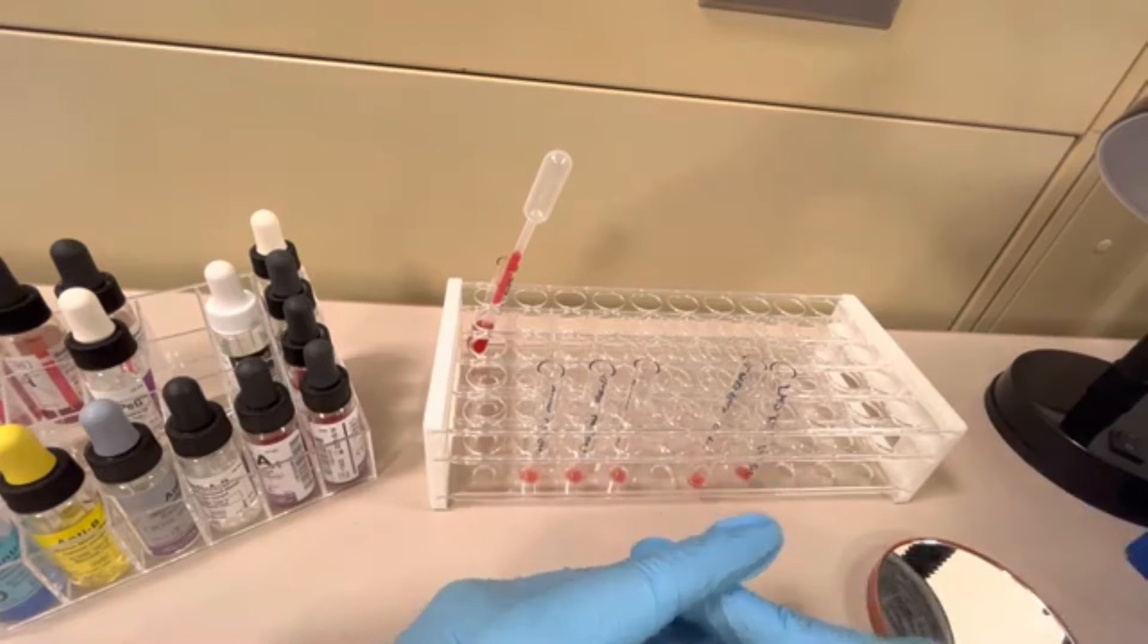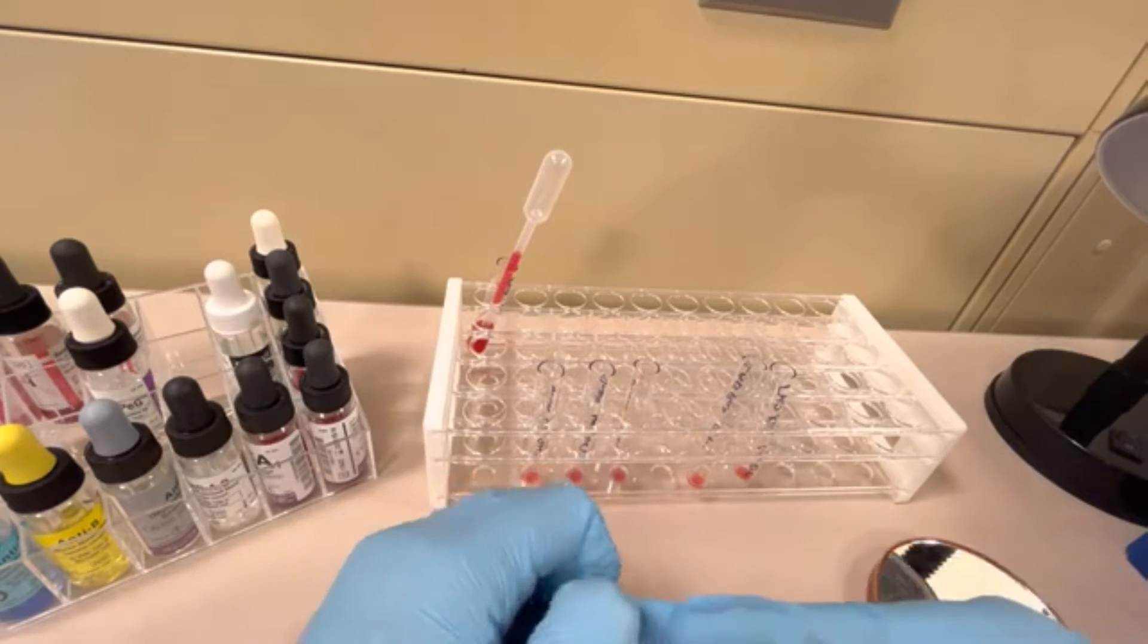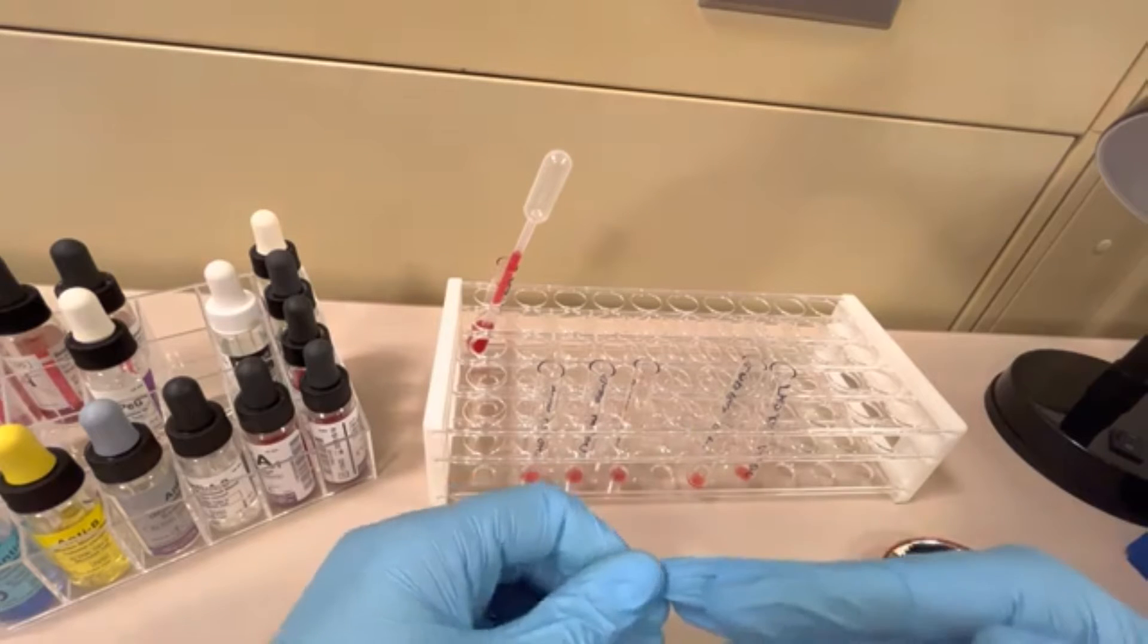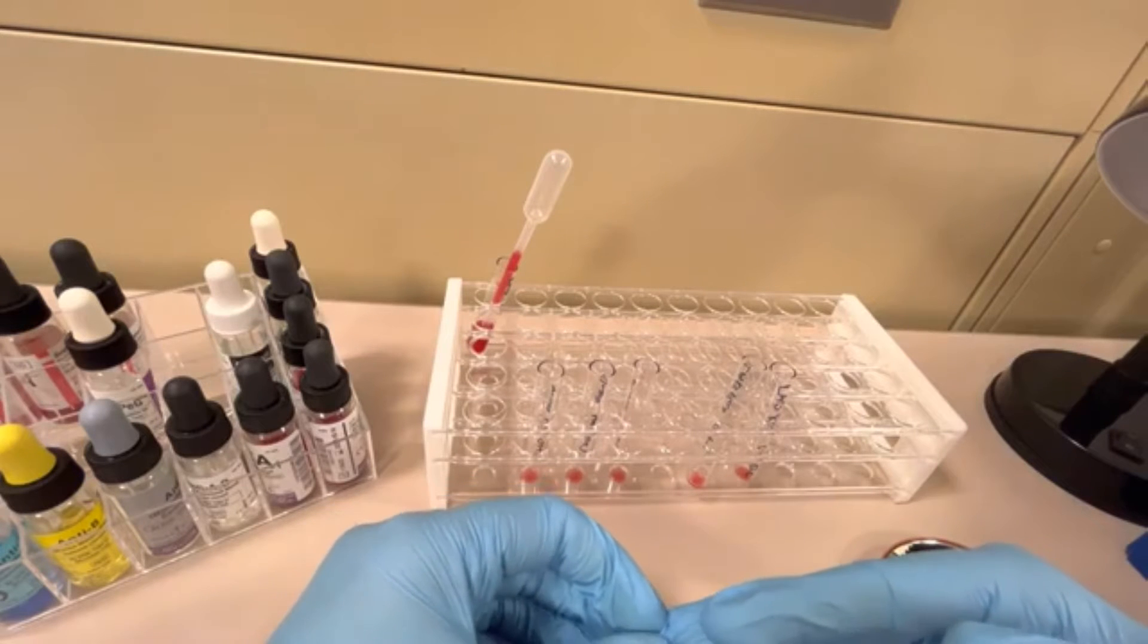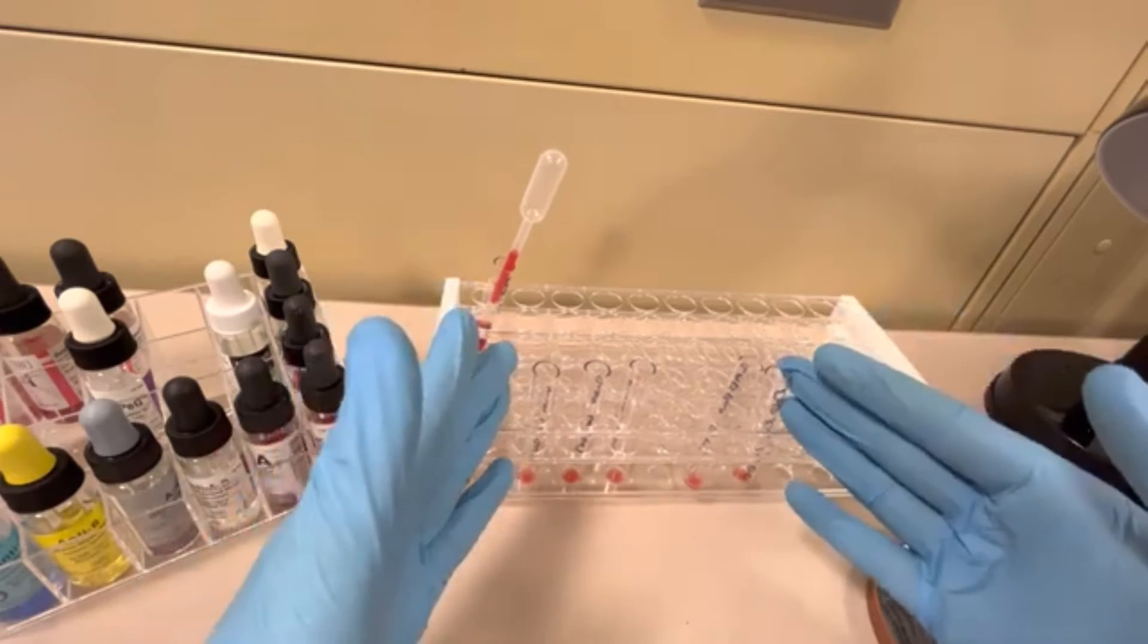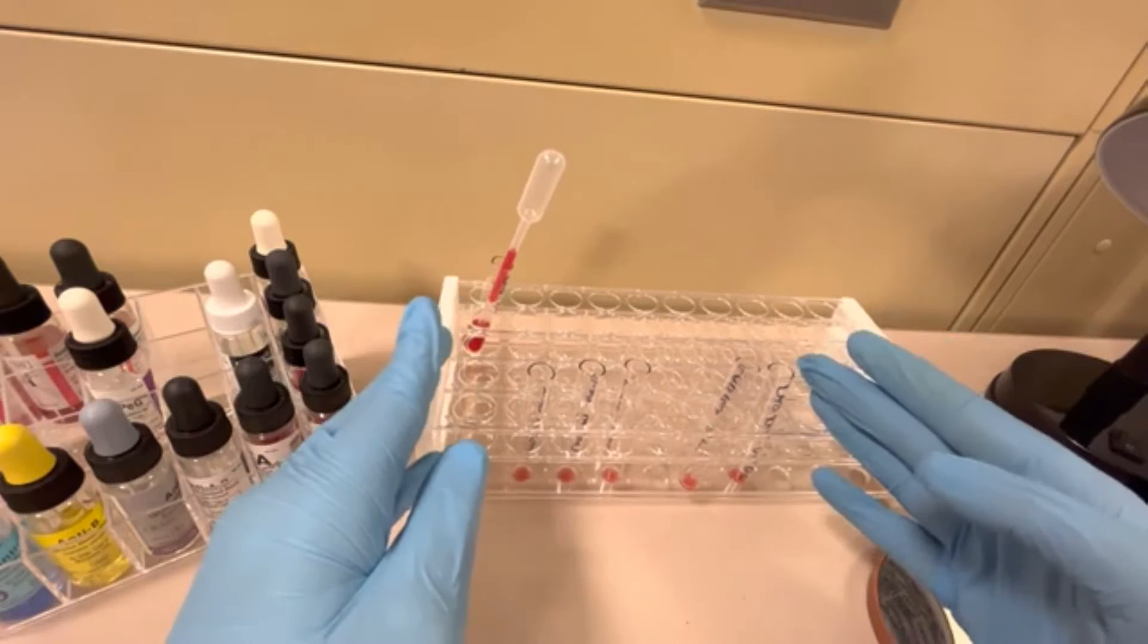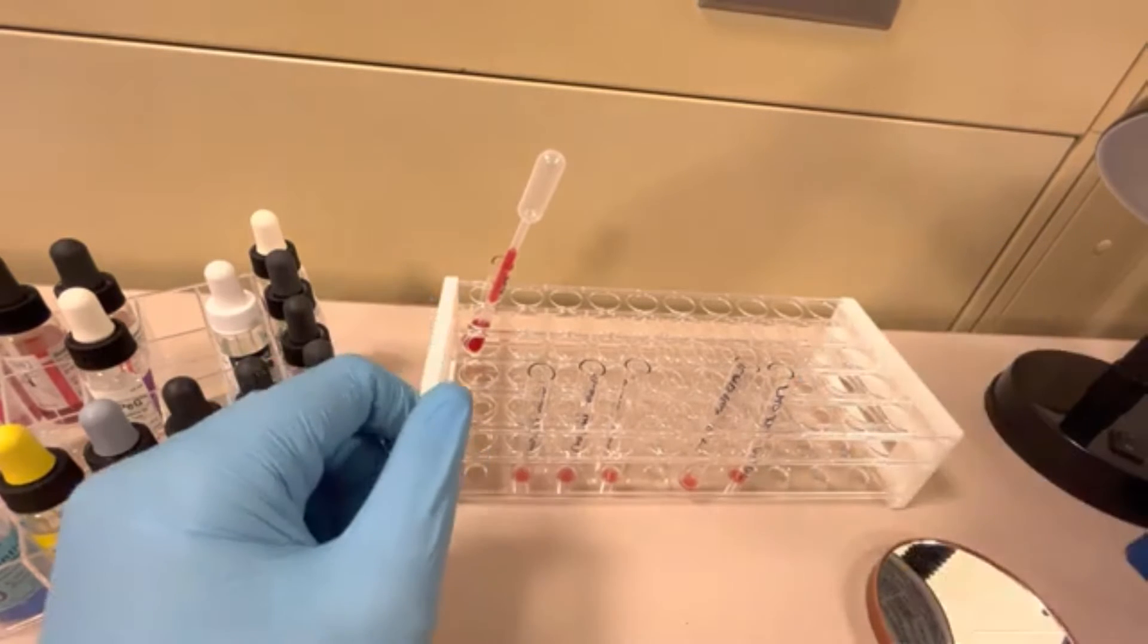Unfortunately for you, if you have to do it manually. If you do not know how to manually wash cells, go ahead and watch one of my other videos about how to manually wash them. I can link that below as well. What I'm going to do is wash these four times to get rid of that Wharton's jelly. And then after that, I will return.